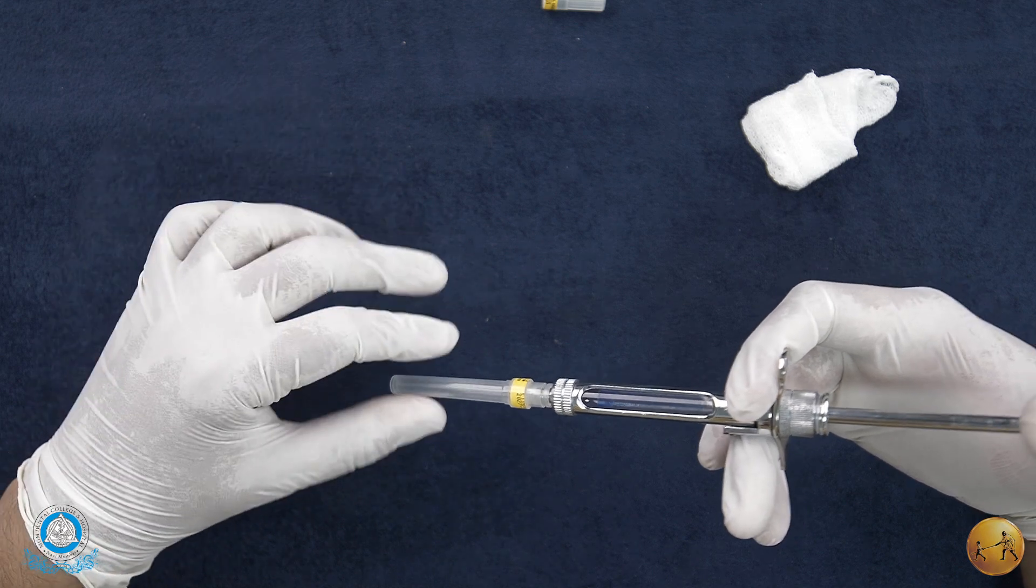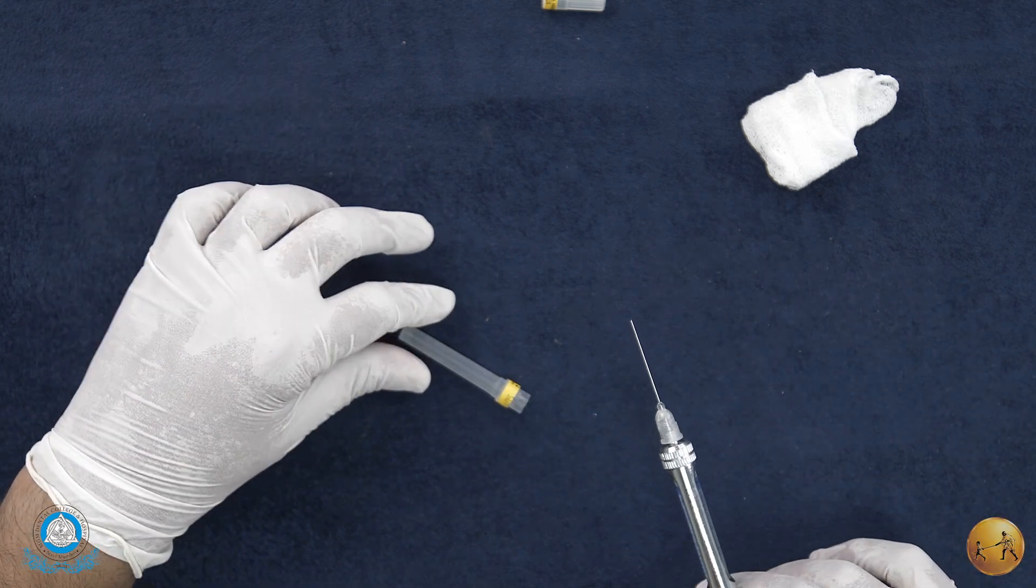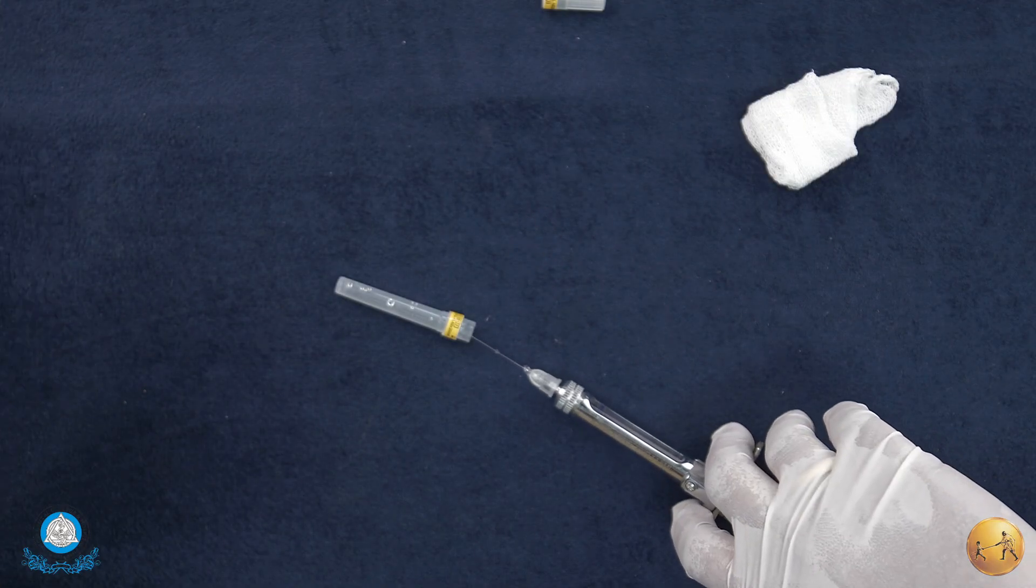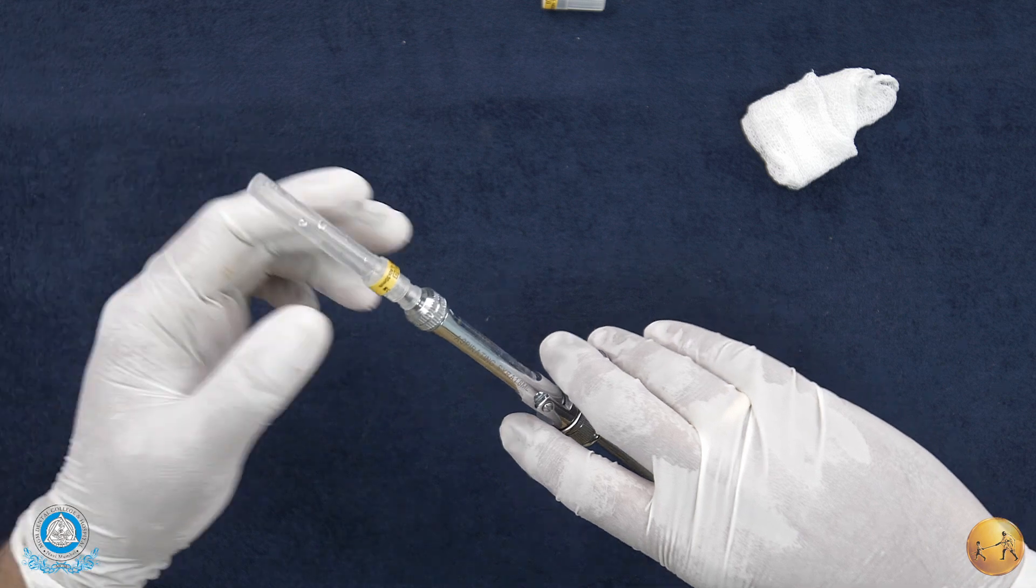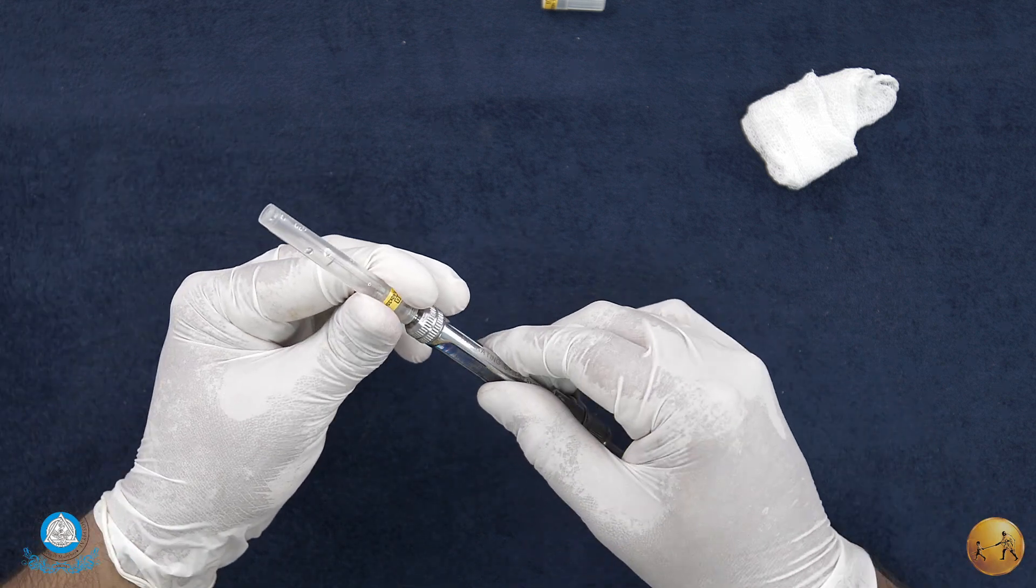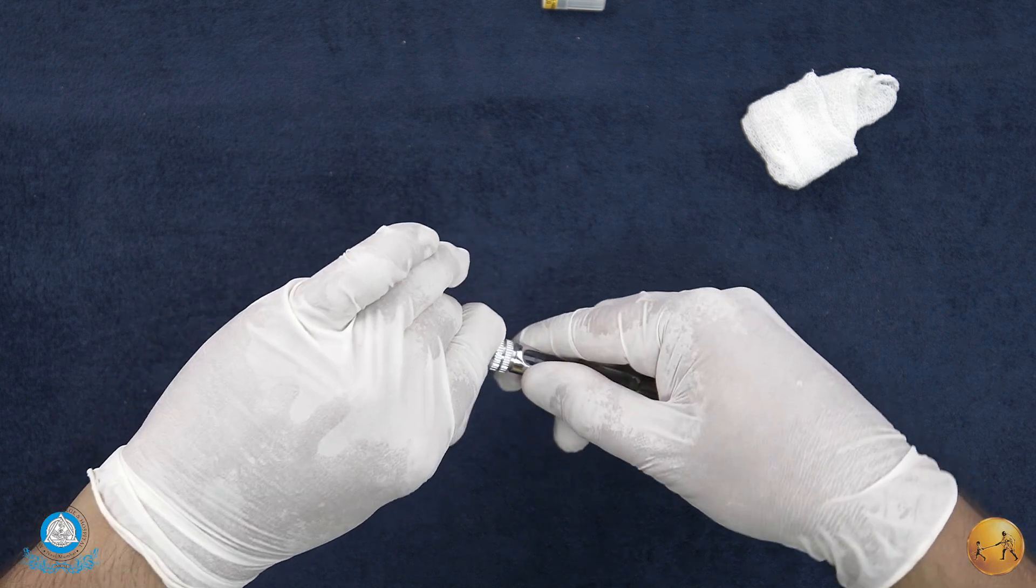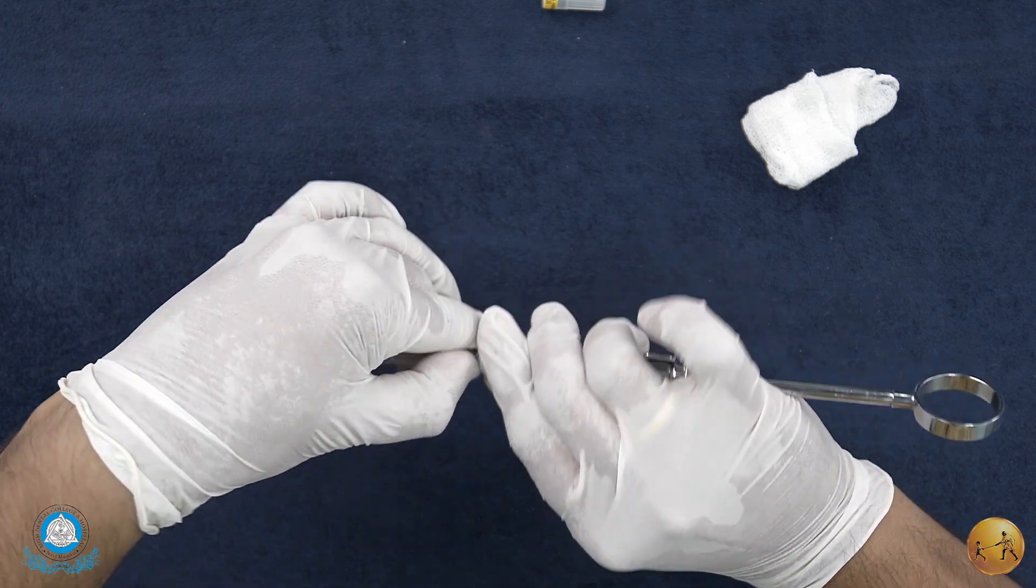But in case you don't have that, you can leave the cap and safely cap it back using the scoop technique - the tried and tested scoop technique. You load it back in and you gently rotate the actual needle.